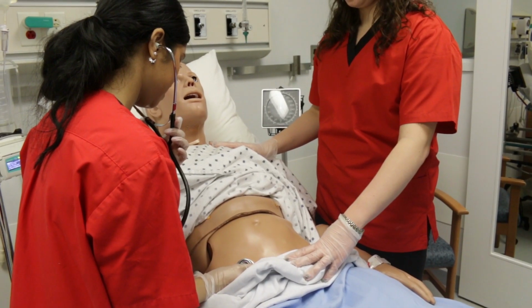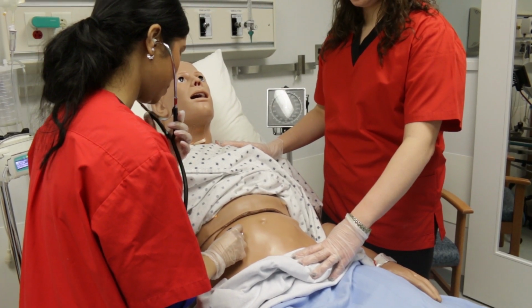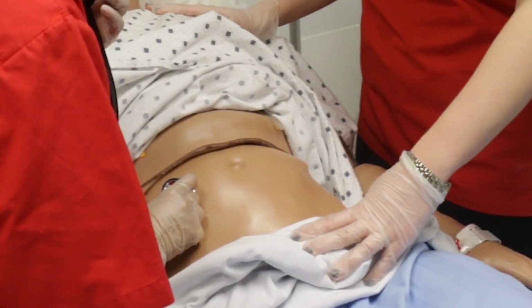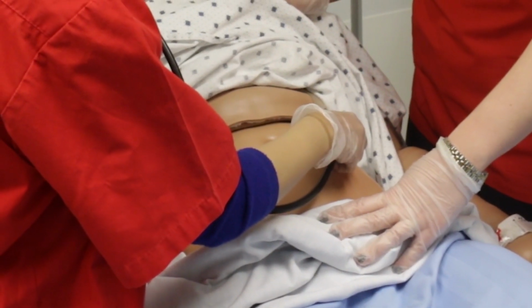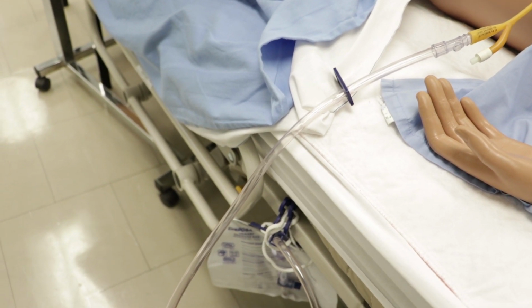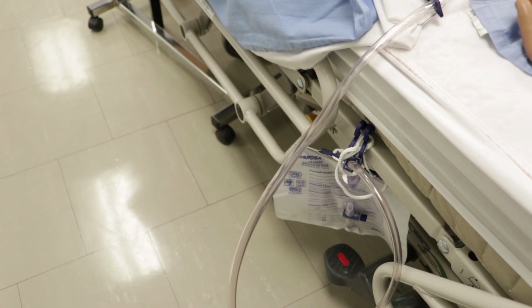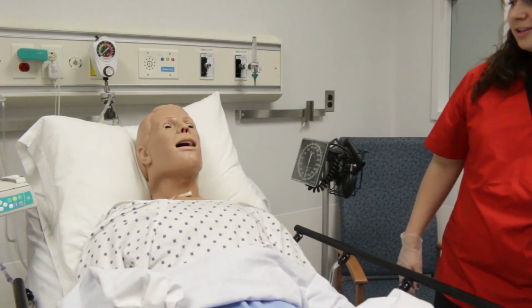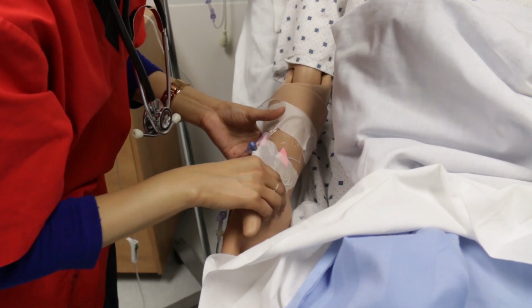Your patient has bowel sounds that are found on both sides of his abdomen. He has a functioning stomach to which a nasogastric tube can be inserted and suctioned. The mannequin has a functioning bladder which can be palpated and catheterized. Hal can have a seizure, which you will notice when the mannequin shakes. The mannequin's right arm is his IV arm.